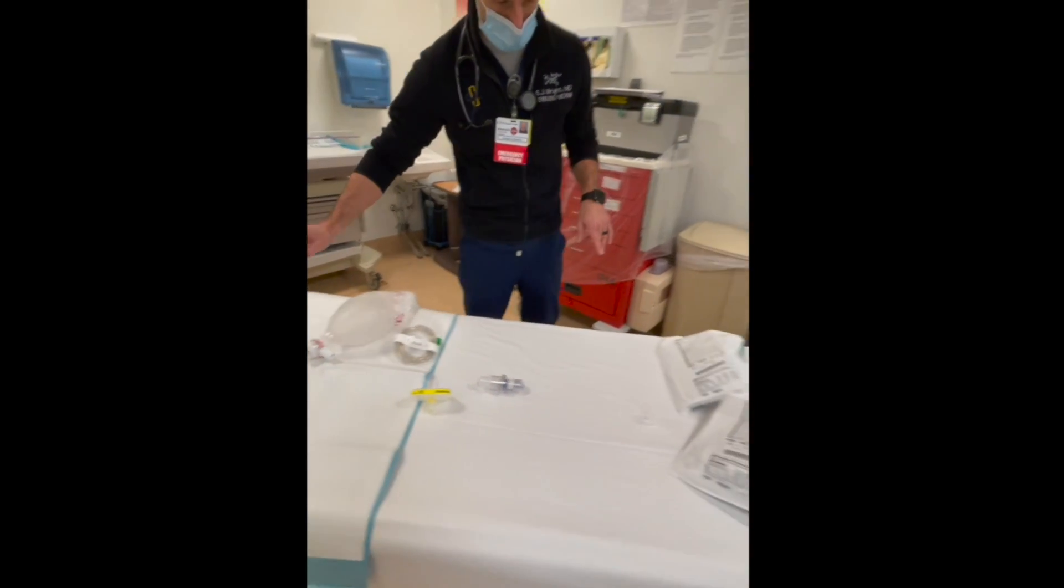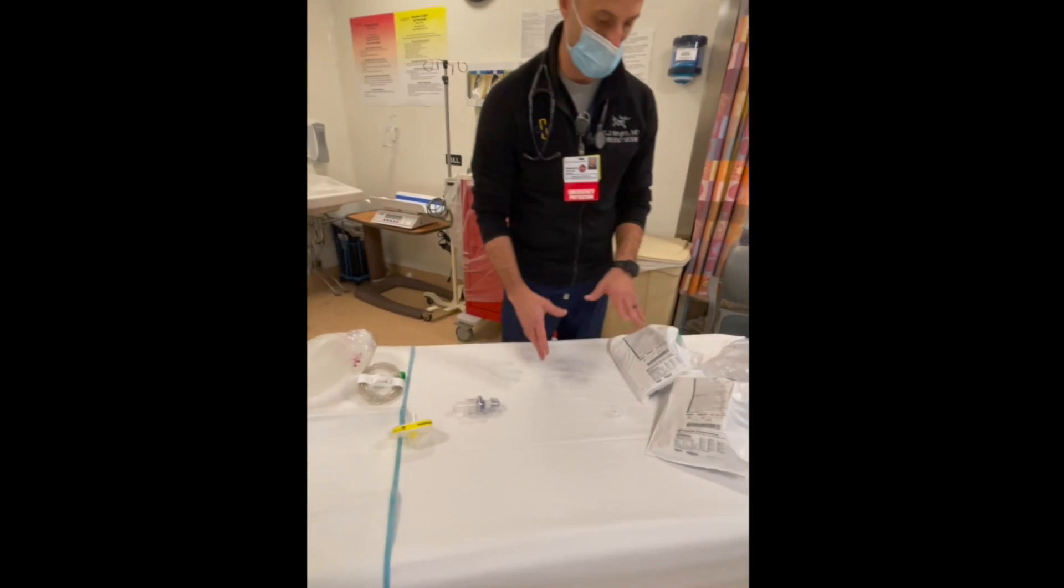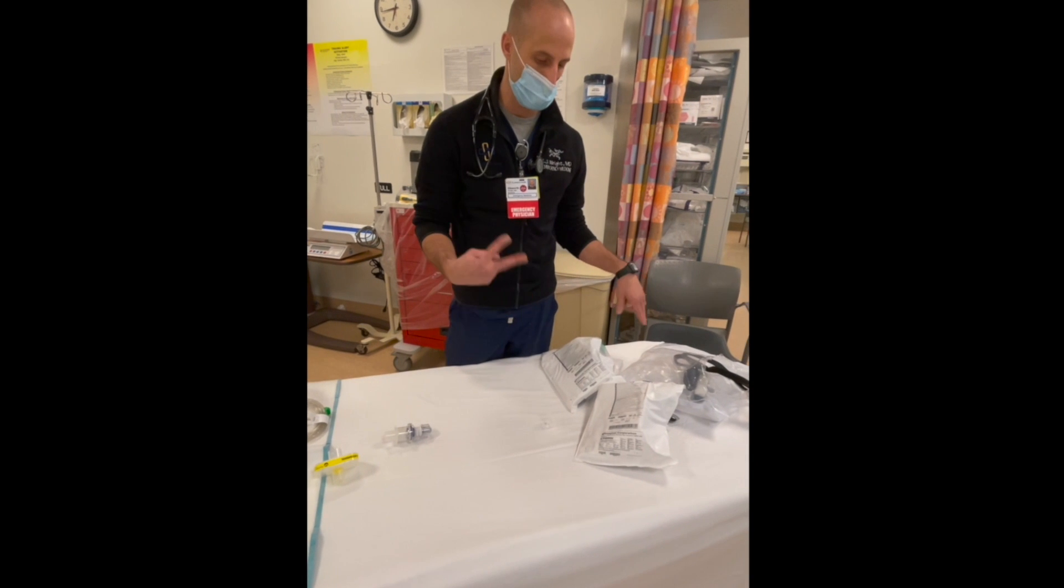There's a picture that Swami sent out on how to put this together, but essentially these are going to be the fundamentals. The other side of it is going to be the mask.